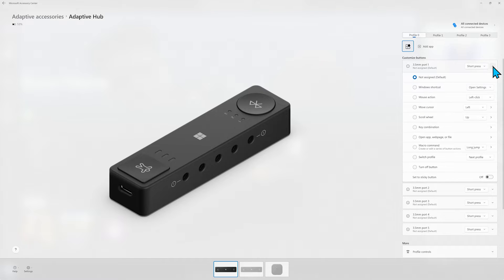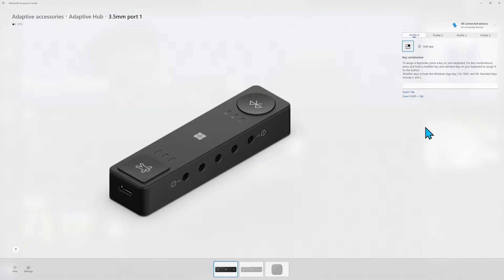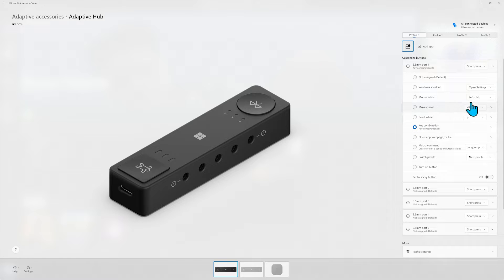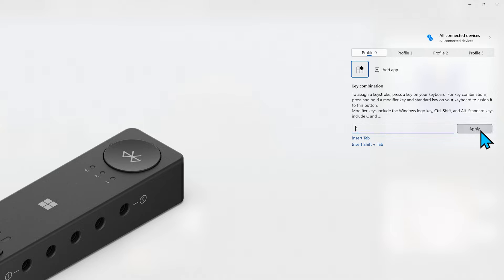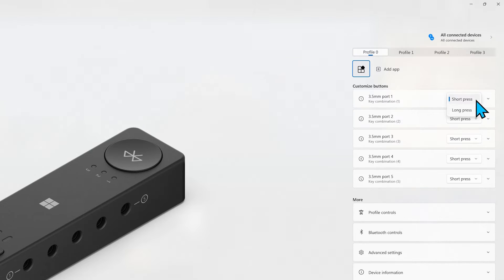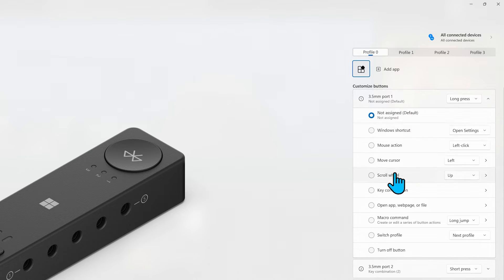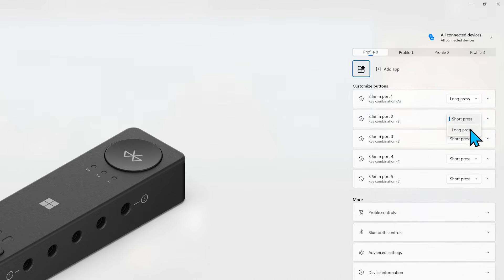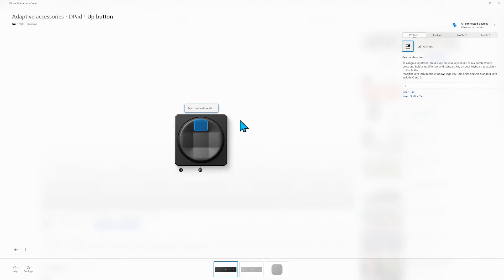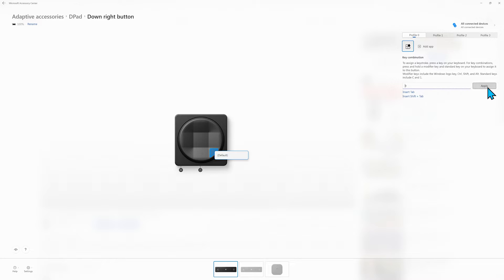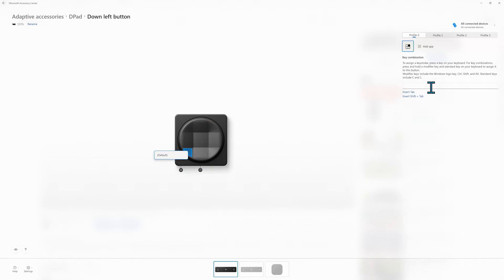You will need a PC with the Microsoft Accessory Center to configure your inputs there first before moving to your iOS device. Learn more about how to do this in our fundamentals video. The key is to assign a unique input to each of the switches you want to use. In this case we will start with adding key combination 1 to port 1 and key combination 2 to port 2 of the hub. In addition to setting up short press, we're also adding unique characters to long press for port 1 and port 2. And in the same way we will go through the setup for the d-pad used in this video. Simply define a unique character per input you want to use on your iOS device.